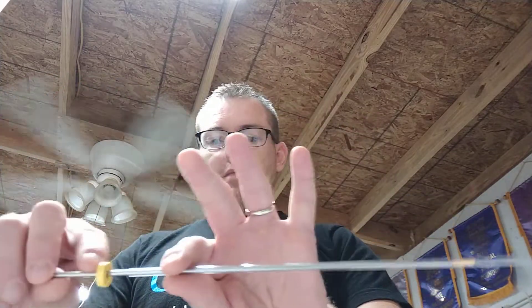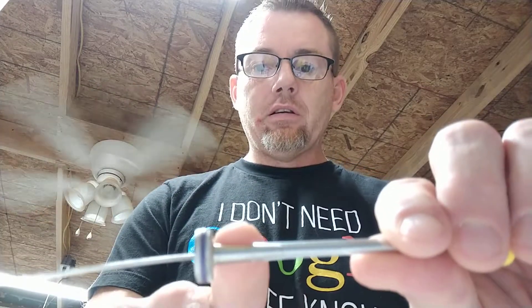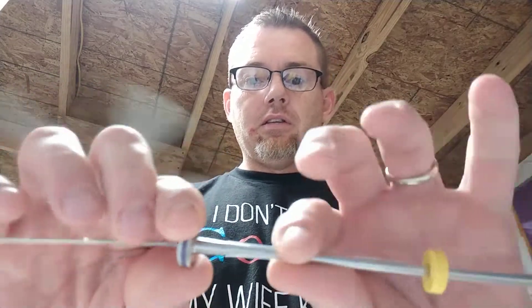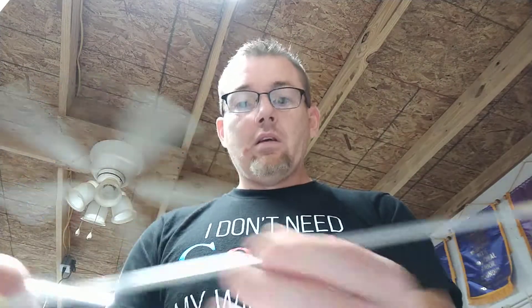With scissors or however you're gonna do it — it's gonna stick out about that much. Then you stick your sheath on, make sure your little donut slides over the sheath before it gets up here, and then you shove that sheath all the way up on there. See how it's tapered here — it should go on there — and then you slide your little donut up there.